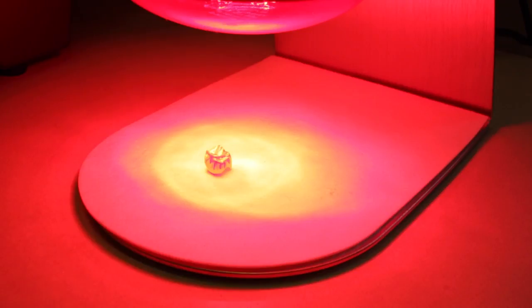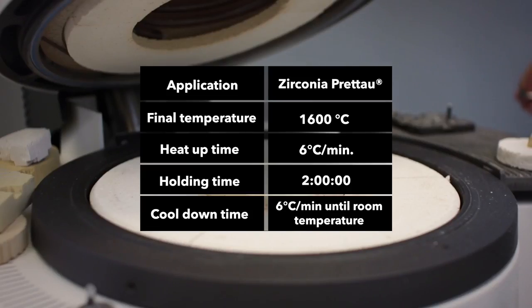When painting is complete, dry under the infrared light for 20 minutes and then place in the sintering furnace as per manufacturer's recommendation.